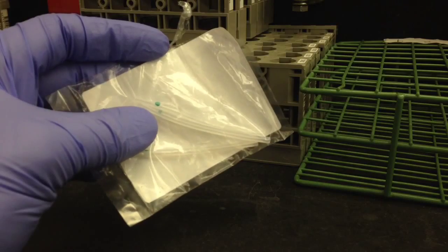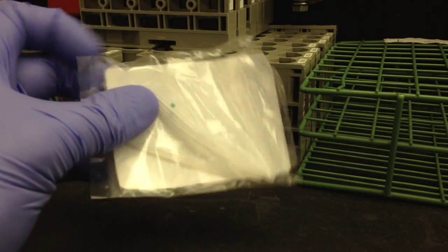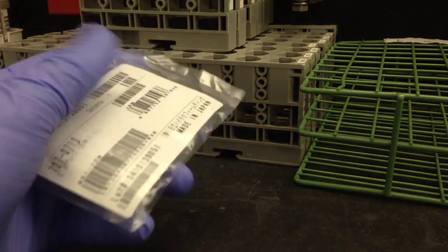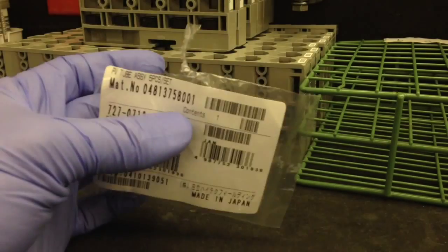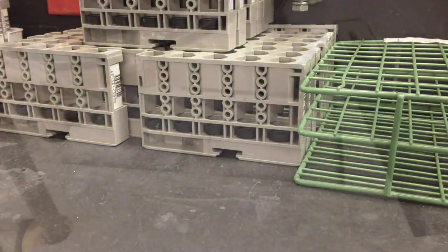For this, all you'll need is the tubing itself. It's the shorter of the tubes available for this analyzer, has a green dot in the center, and should be properly labeled if you still have it in the packaging.